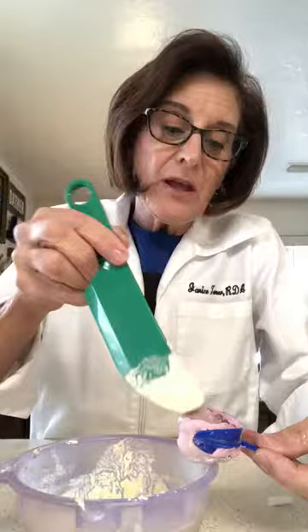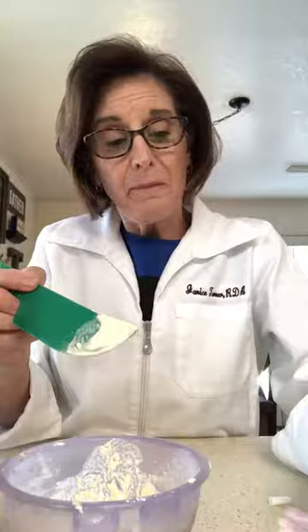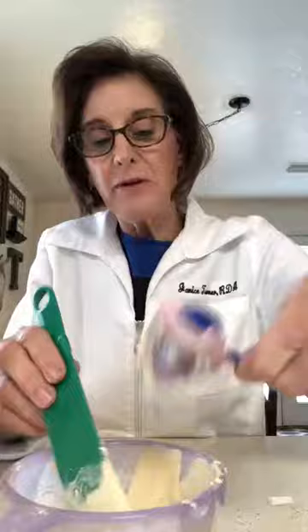I have a nice paste — it's not too runny, but it has a nice peak to it. So now I'm going to take my model. I don't have a vibrator here at home, so I'm just going to tap it. I'm going to put it in just a little bit at a time and tap it down. You can see how it's flowing very easily. When you do use a vibrator, you just kind of move it around slowly — you don't want to go too fast. Then go back to where you started and do it all over again.